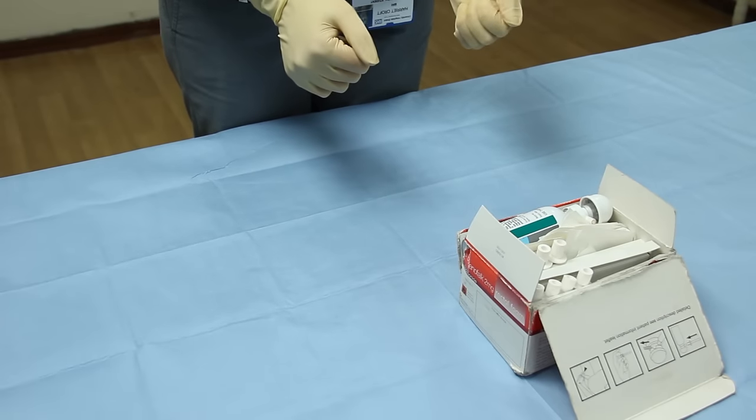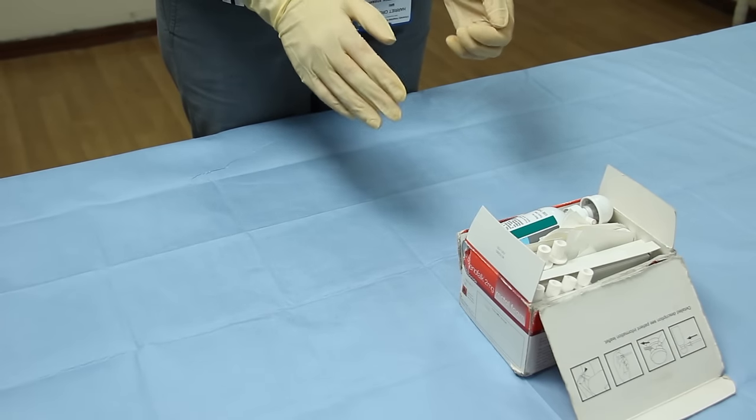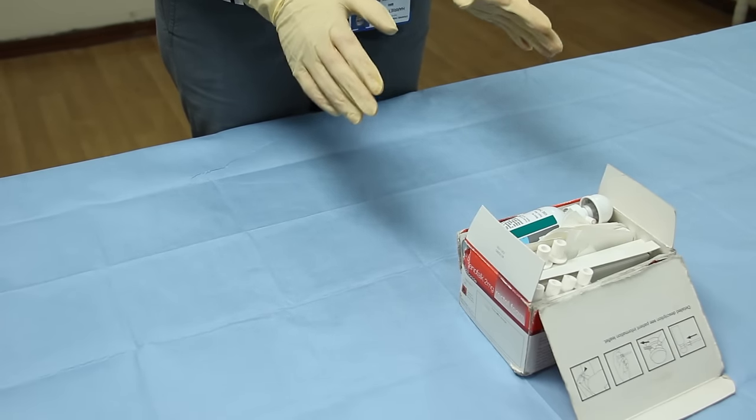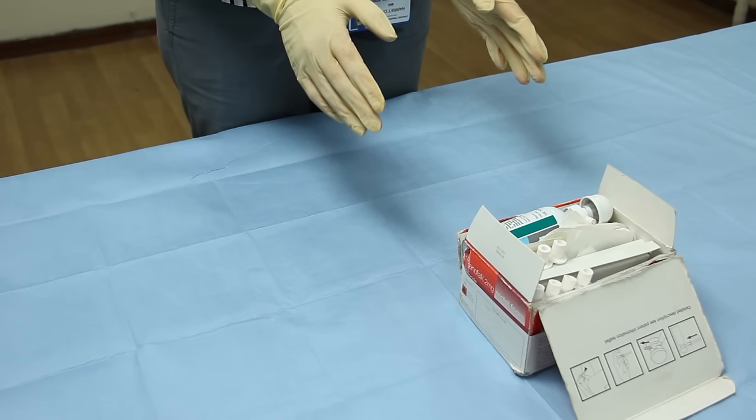This is the box that the patient will get which contains the rectal foam. Each box has enough equipment in it for 14 applications.